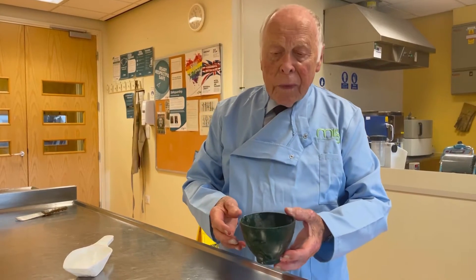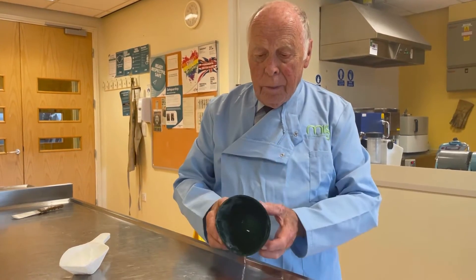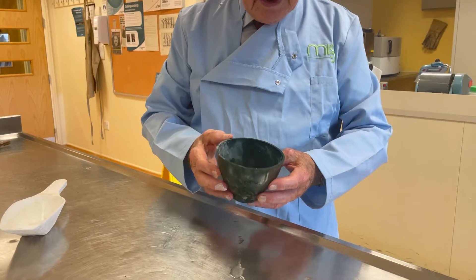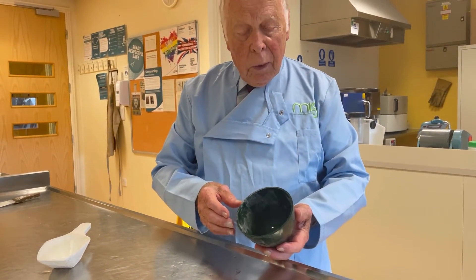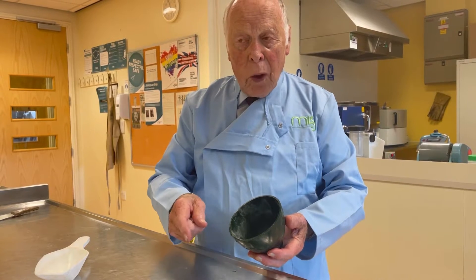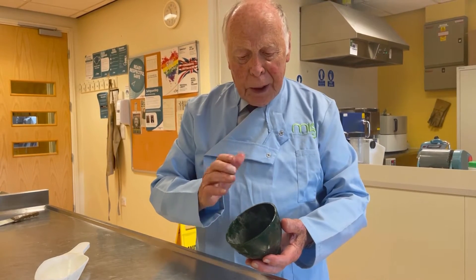First of all, you get a clean — and I do mean clean — basin in which to do it. Any residual plaster that's in that basin will affect the setting time and the quality of the plaster you have mixed, so it must be clean.